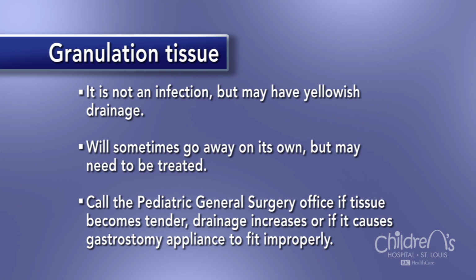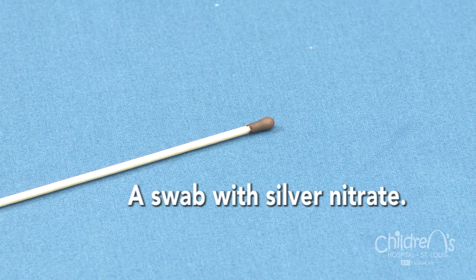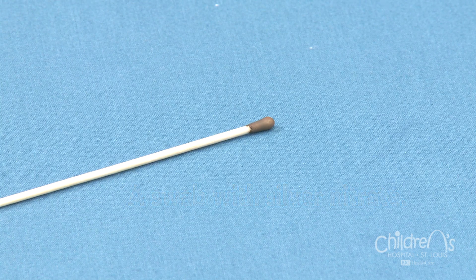Call the general surgery office if the tissue becomes tender, drainage increases, or it's causing the gastrostomy appliance to fit improperly. A nurse or nurse practitioner can order a small Q-tip with medicine called silver nitrate to be applied to the tissue. The medication helps the tissue shrink and dry up. After it's applied, it can make the tissue look gray or white.